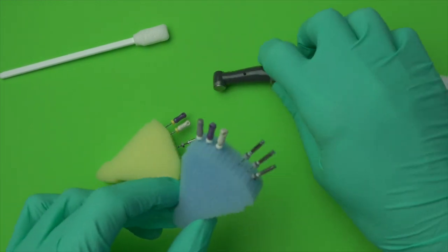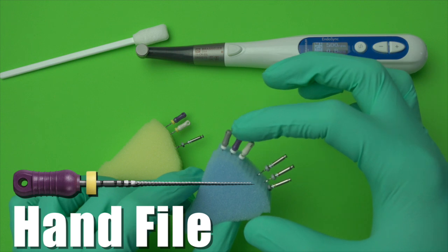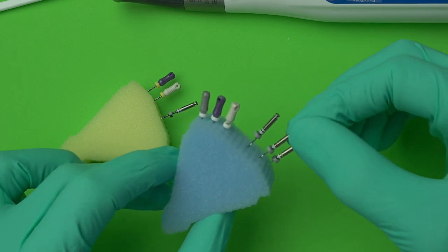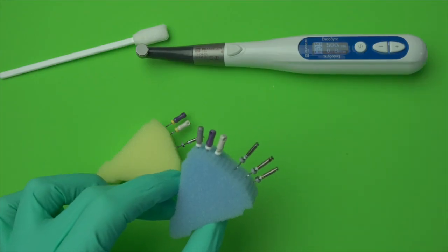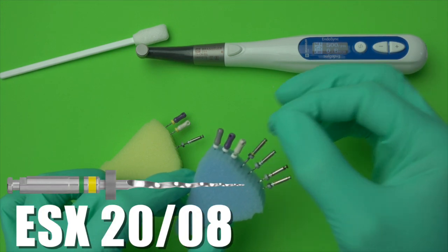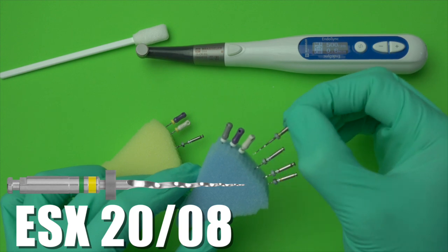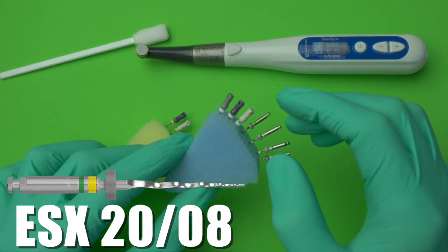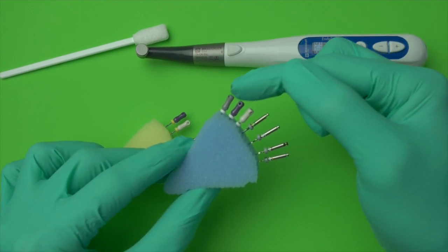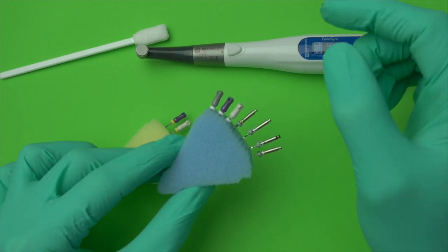For advanced cases, we start with three small stiff files from Brassler — stiff files 8, 10, and 15 — and then the expediter series: the 1505 with two scout files, the 1504 and 1502. In almost all advanced cases I also recommend using the orifice opener. The ESX orifice opener is a size 20, 0.08 taper — it does the job of about three Gates Gliddens in one file. The goal is straight-line access to the coronal one-half of the root.